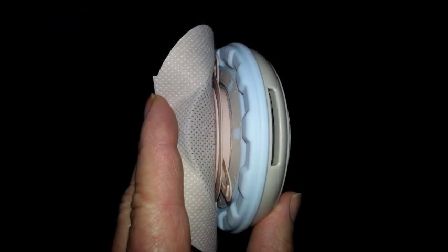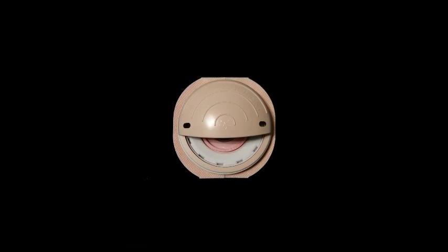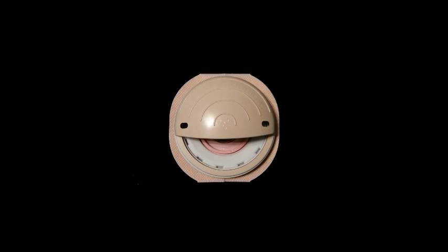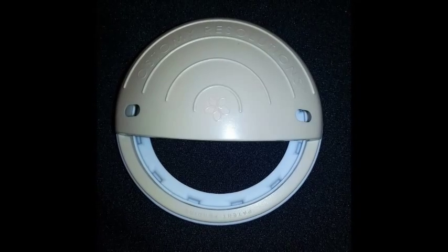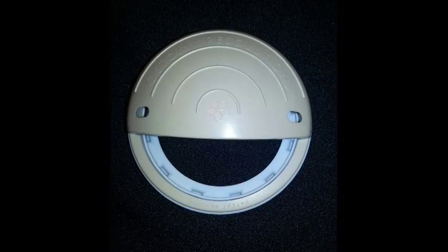The guard maintains adhesion of the wafer, preventing blowouts, and helps flatten stoma sites located within skin folds and creases. 360 degree support may help prevent peristomal hernias.